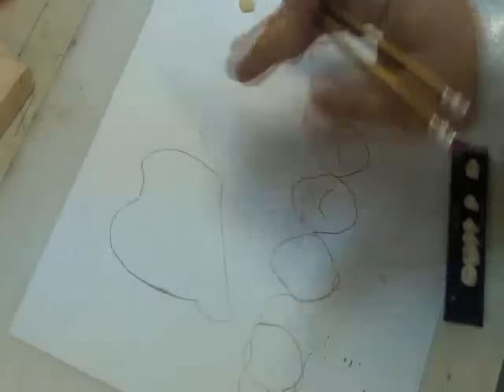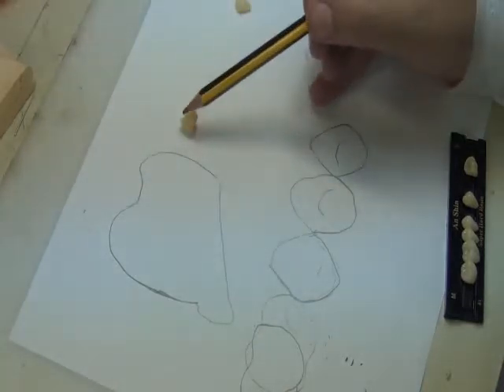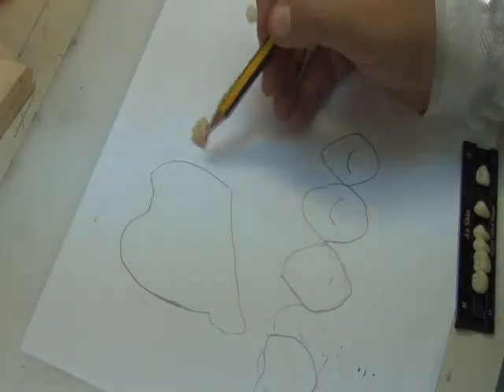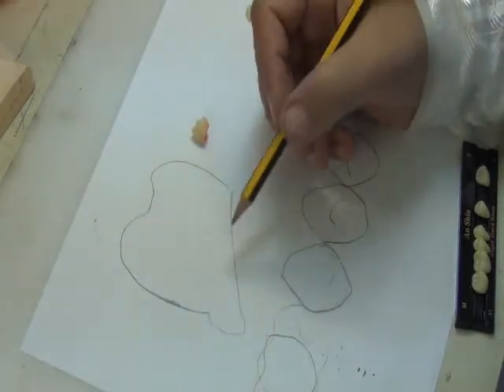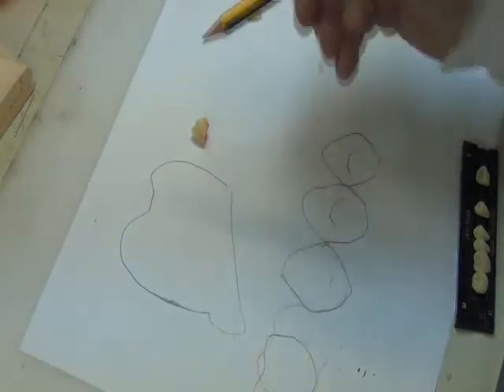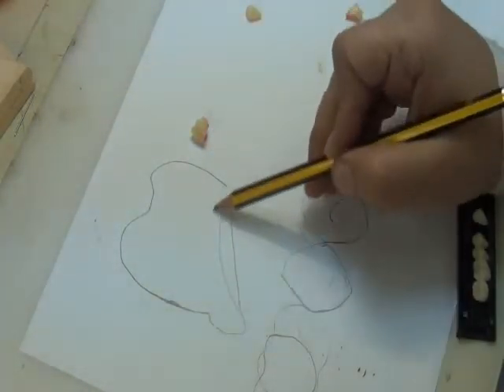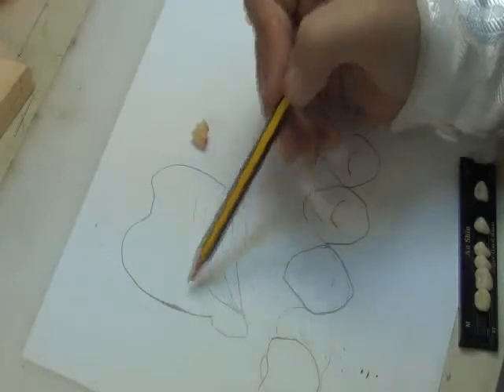So how do I trim from the tooth? I keep it trimming in a manner where I try to preserve the occlusal gingival dimension. So if I'm looking at this tooth, I try to preserve this buccal form of the tooth, because preserving this will keep the morphology of the tooth when seen from the buccal, and this is the one that you see when the patient smiles. Okay? So when I want to trim, I usually go into the lingual side and trim, and no matter how much I trim, if I need this much of trimming, I preserve the buccal surface.